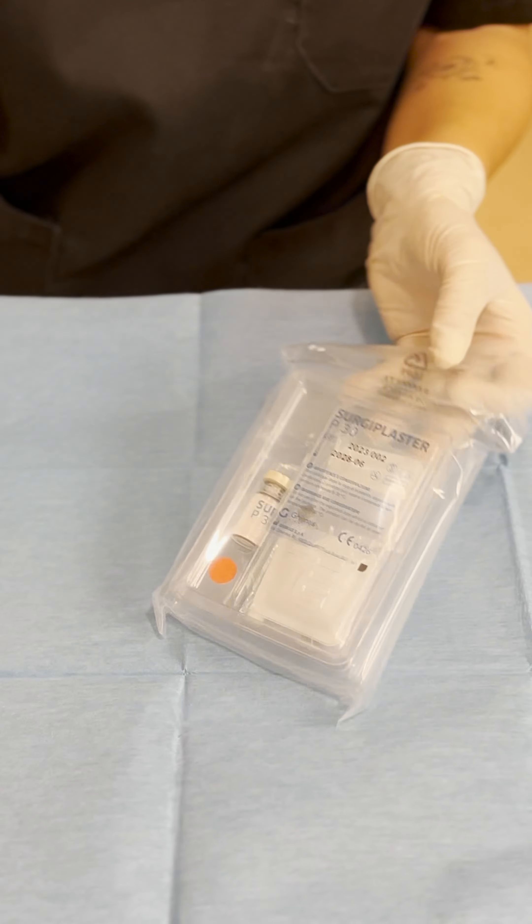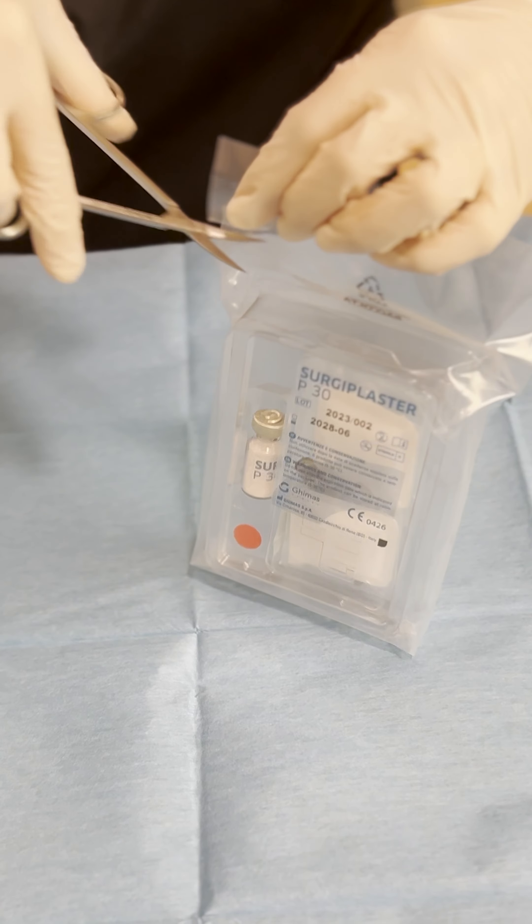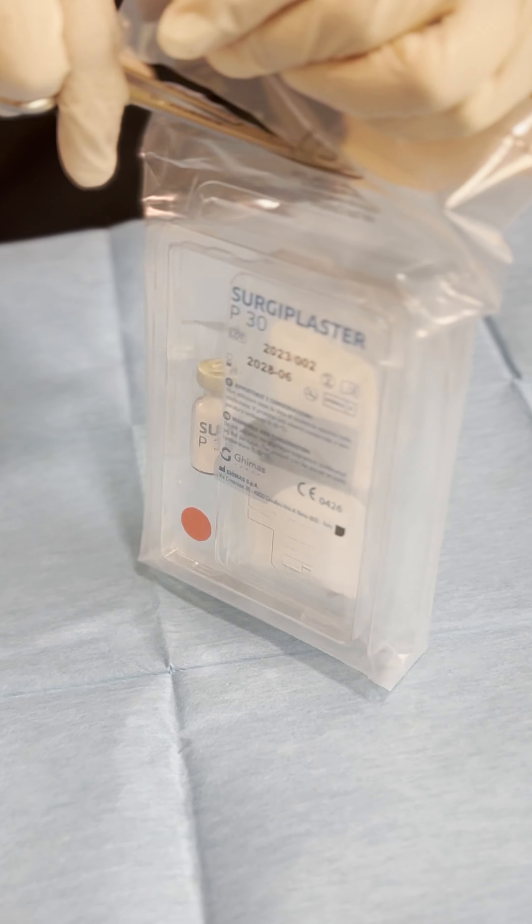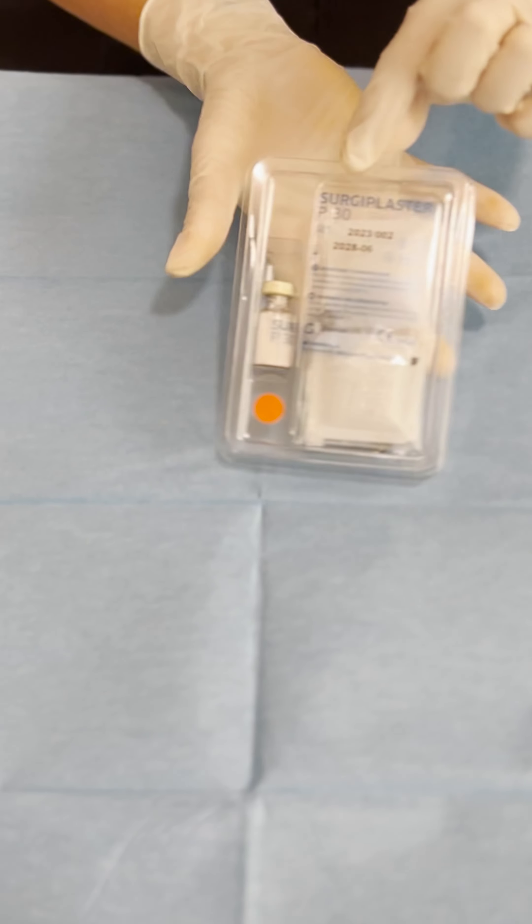Expire date and we can open this up real quick. Remember that the inside is sterile. So we open it up. This is how it is.